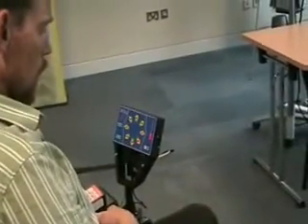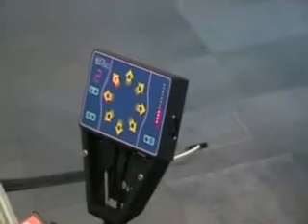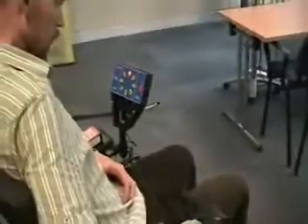At the moment it is scanning as an automatic scan, so the LEDs are scanned one at a time. Let's press the switch again so you can see some movement of the chair.